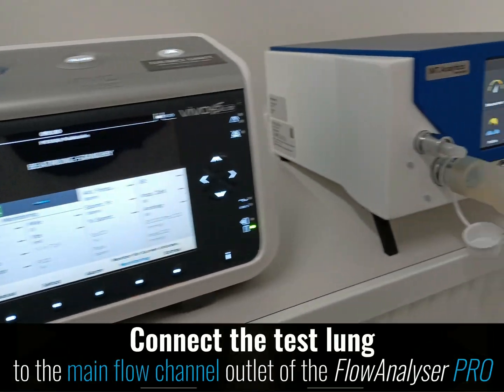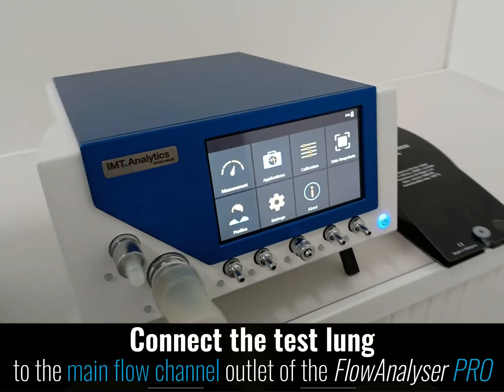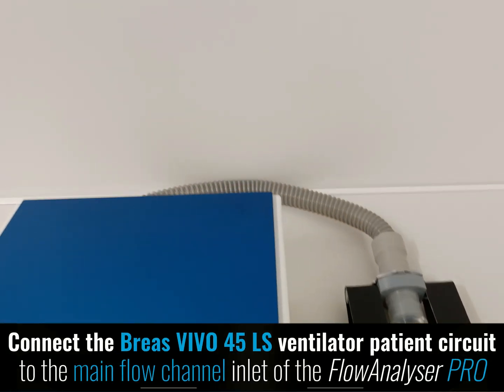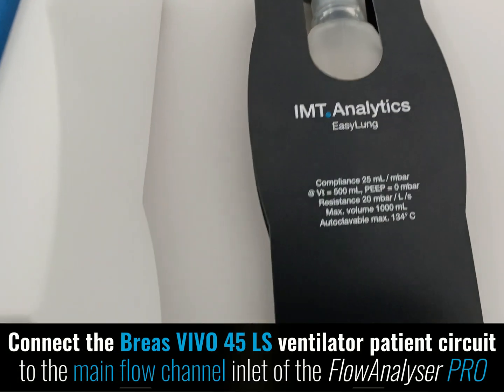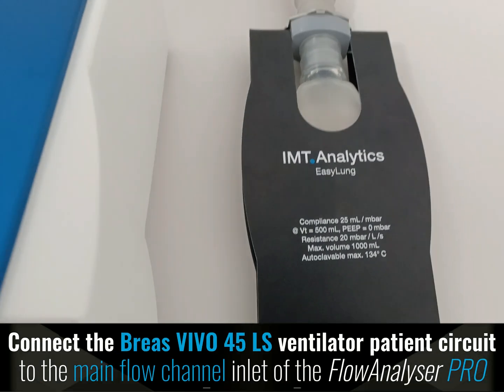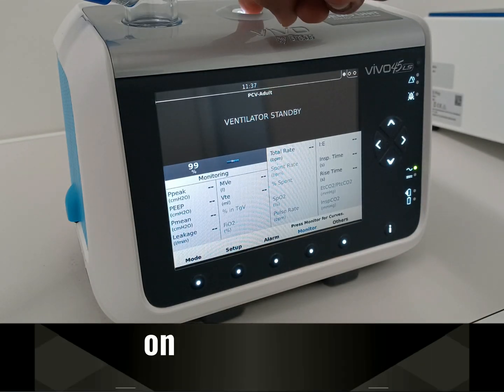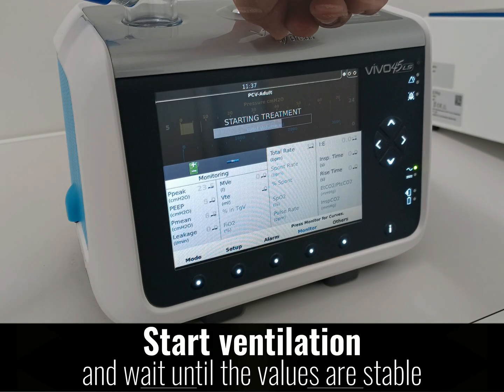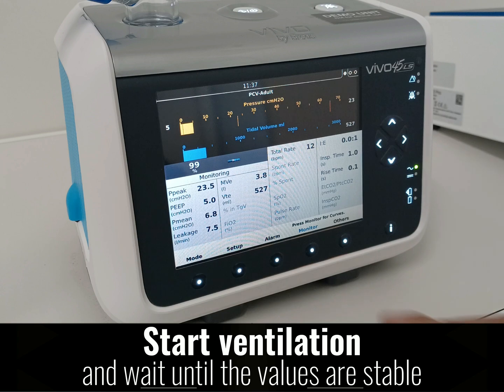Connect the test lung to the main flow channel outlet of the Flow Analyzer Pro. Connect the BreaS Vivo 45 LS ventilator patient circuit to the main flow channel inlet of the Flow Analyzer Pro. Start ventilation and wait until values are stable.